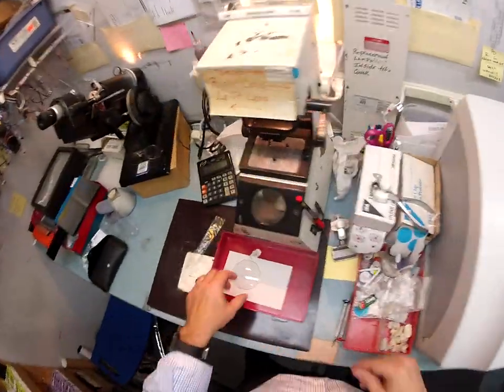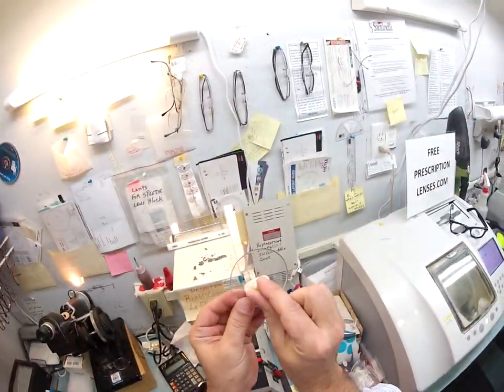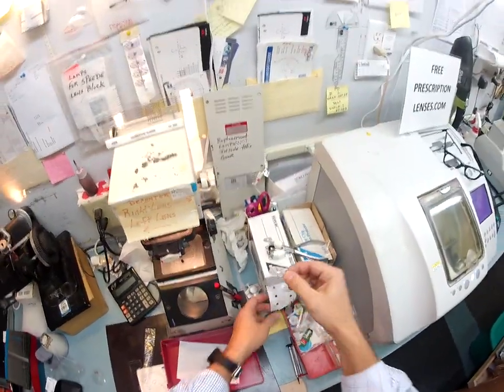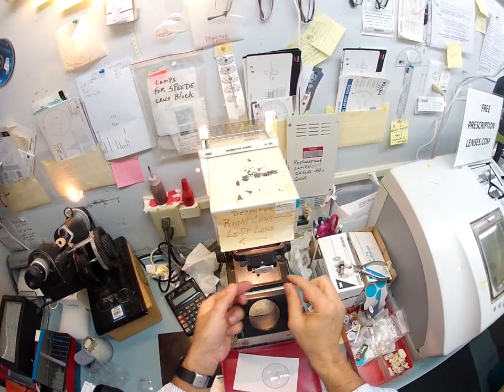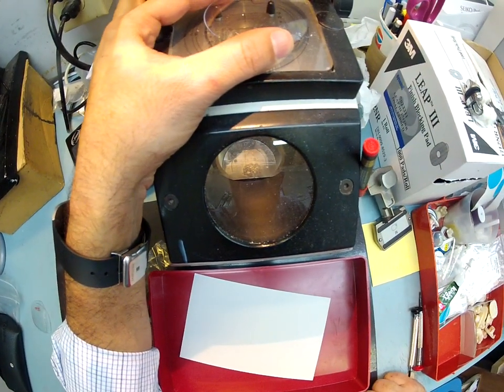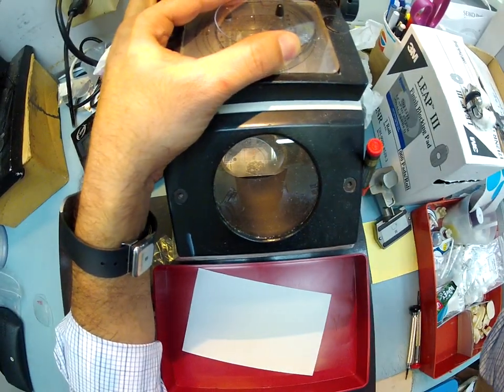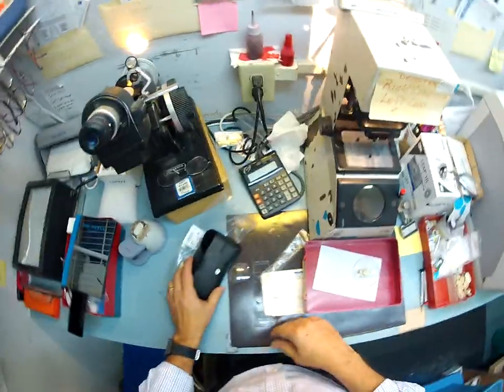That little white block you saw sitting on your lens is what holds it in place while it is cutting. I'm going to put a double-sided adhesive sticker — the black side is the sticky side, it's a little 3M pad. I pull off the front side, then I put your lens into the blocker. I'm going to go four millimeters below center — there it is, lined up and ready to go.